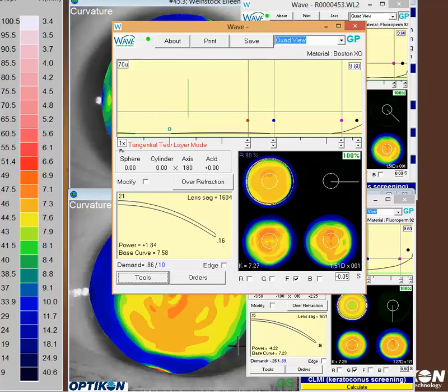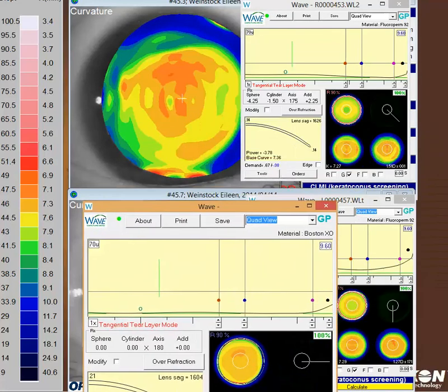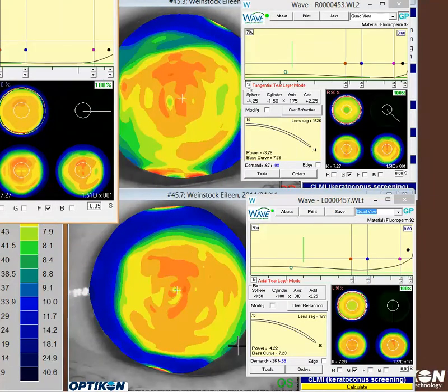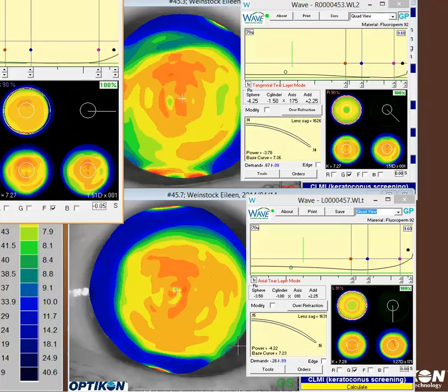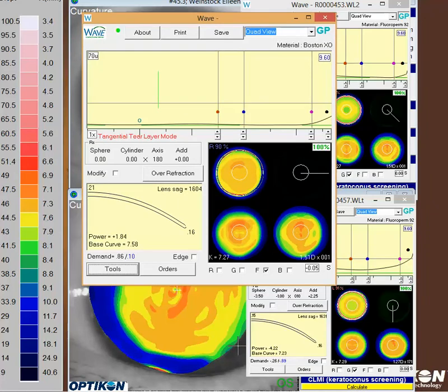Now you've got a back surface that looks a lot like that. If you look at your actual cornea, you'll see that this back surface of the lens is very similar to the actual true topography. Contrasting that to your original design, you'll notice a difference in the lower left representation of the back surface compared to your cornea. I think that will help get this lens to center. Now if you look at each meridian, you'll see a much nicer alignment through each principal meridian in the landing zone, which should help this lens center better.